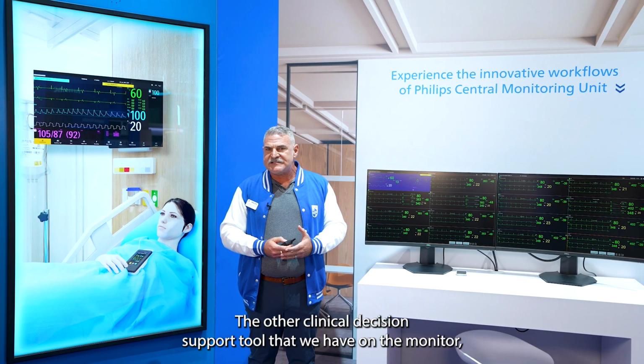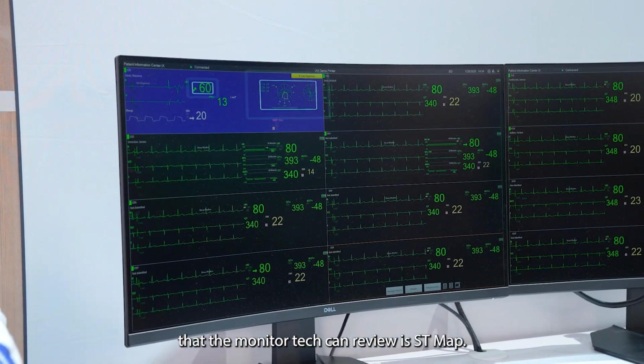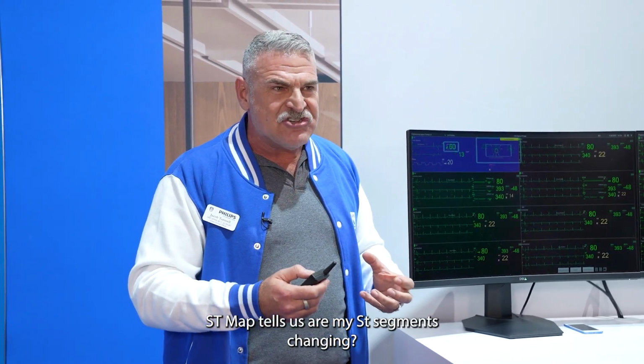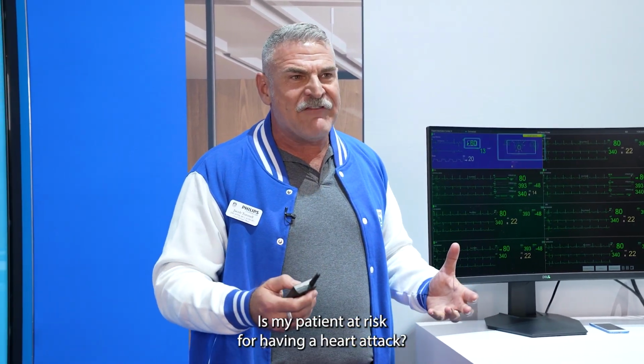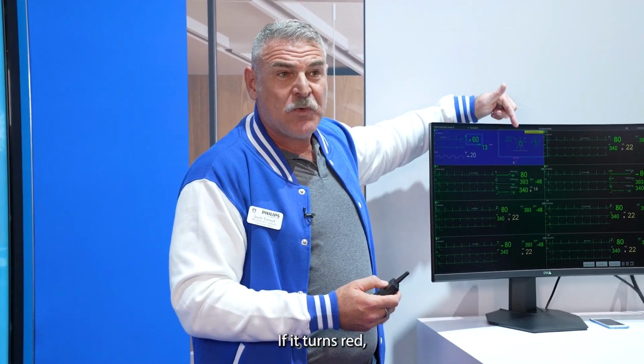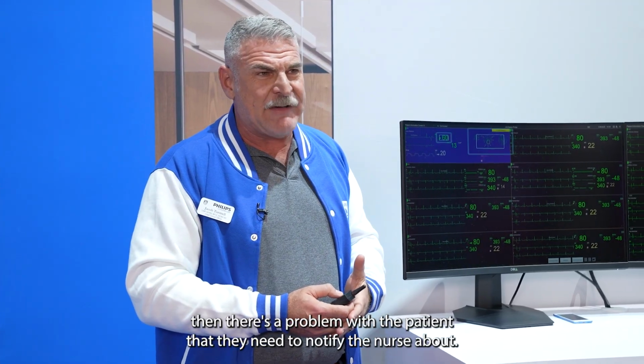The other clinical decision support tool that we have on the monitor that the monitor tech can review is ST-MAP. ST-MAP tells us, are my ST segments changing? Is my patient at risk for having a heart attack? And very quickly they can look at that. If it turns red, then there's a problem with the patient that they need to notify the nurse about.